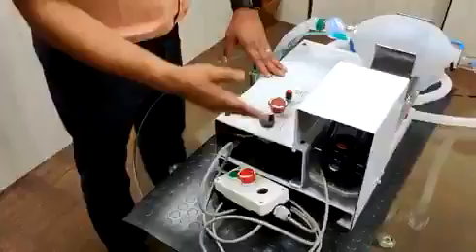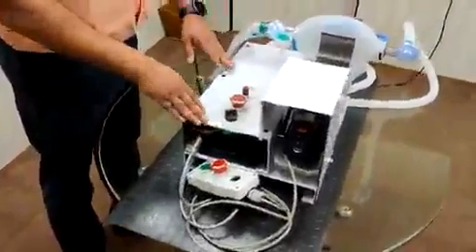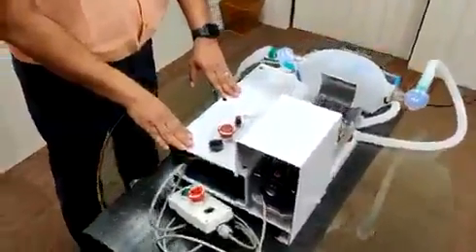For making this device, we have used all standard off-the-shelf components so as to ensure the reliability and durability of this device. Thank you.